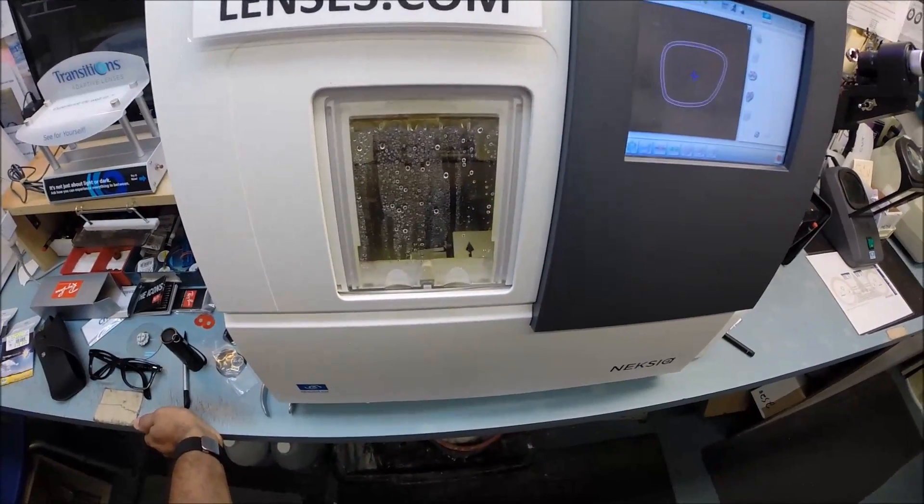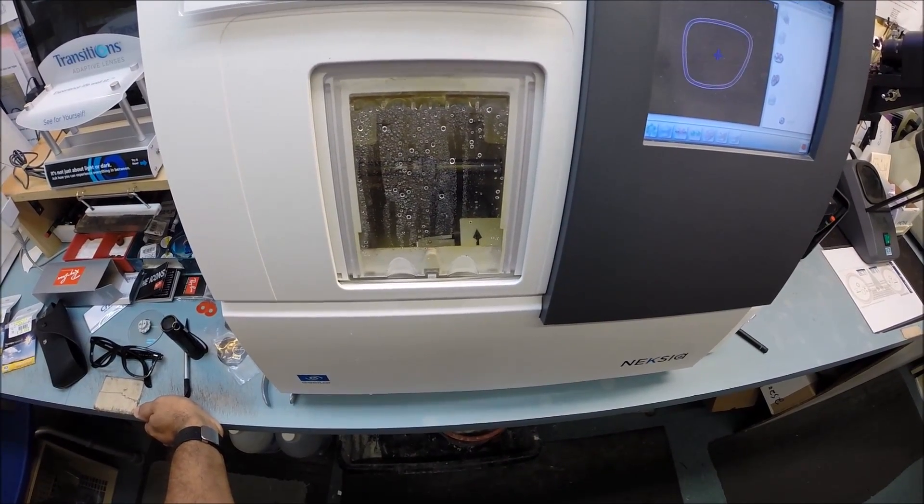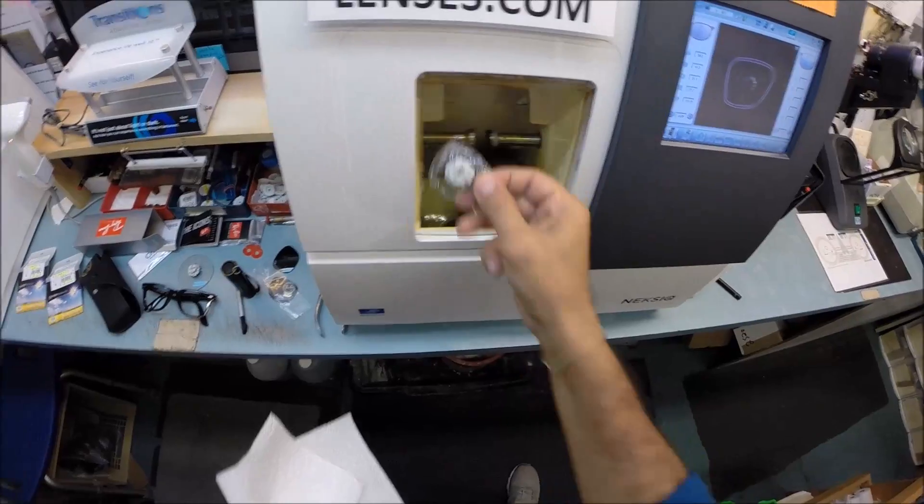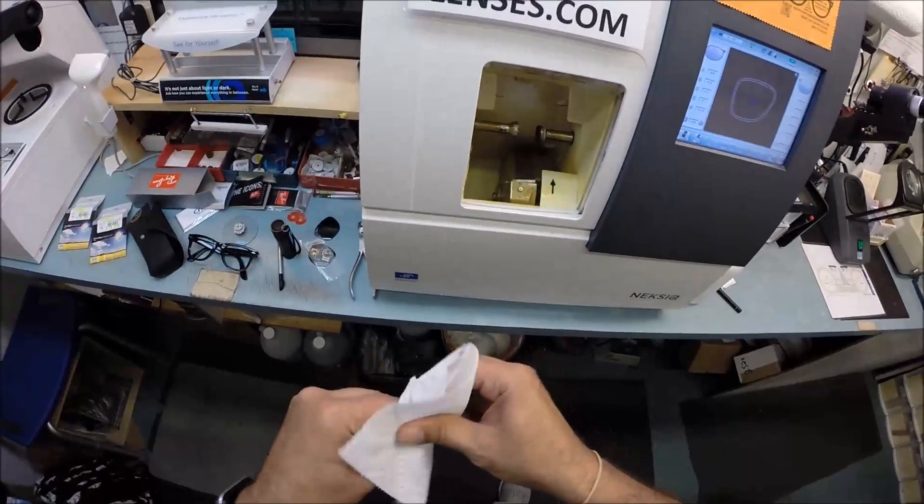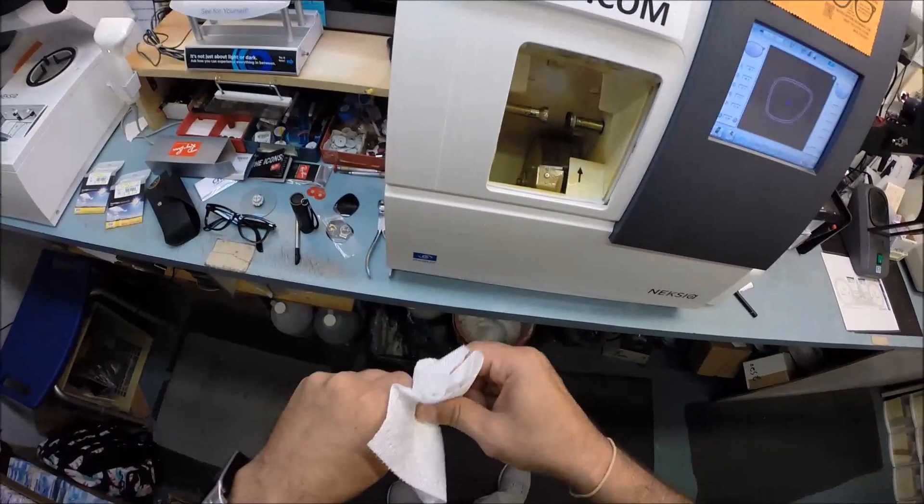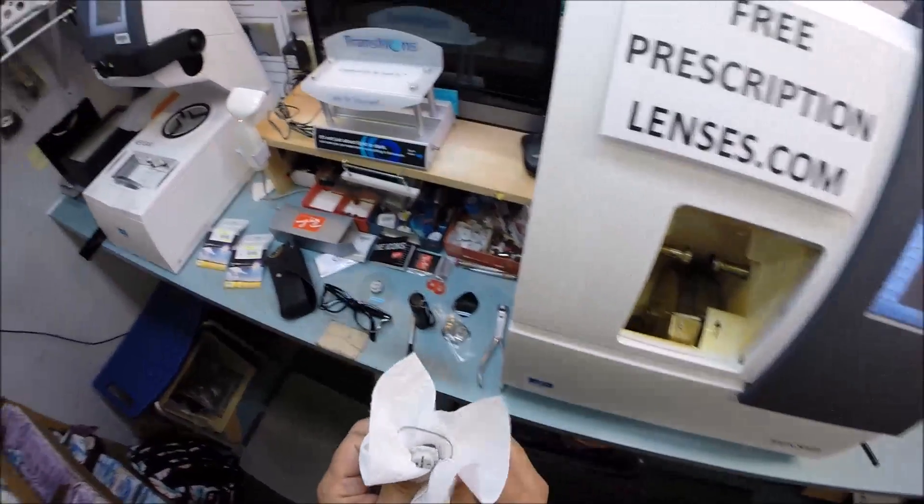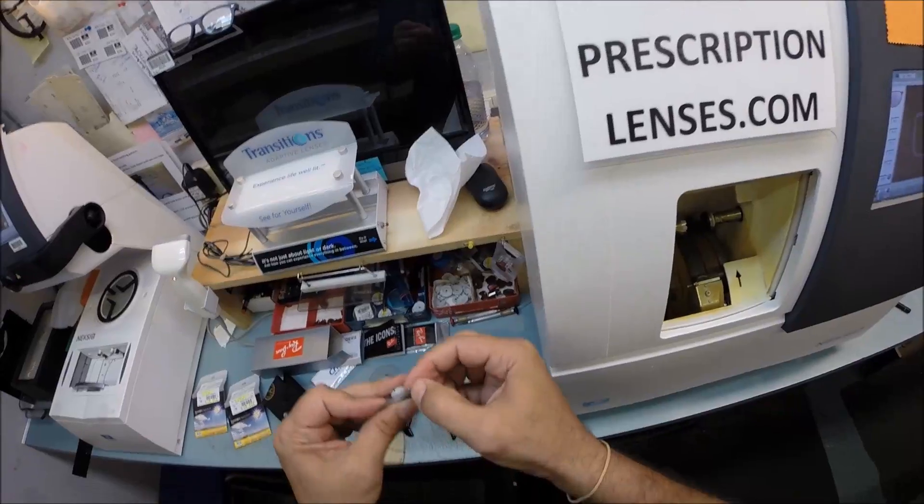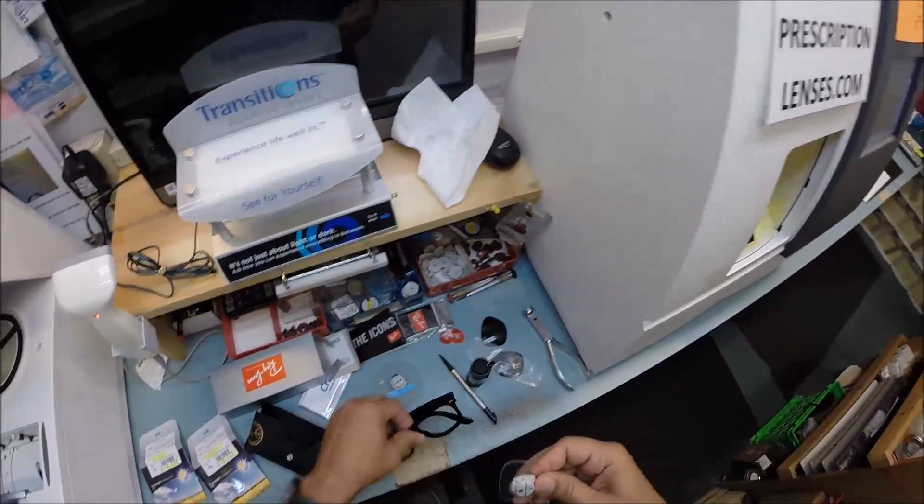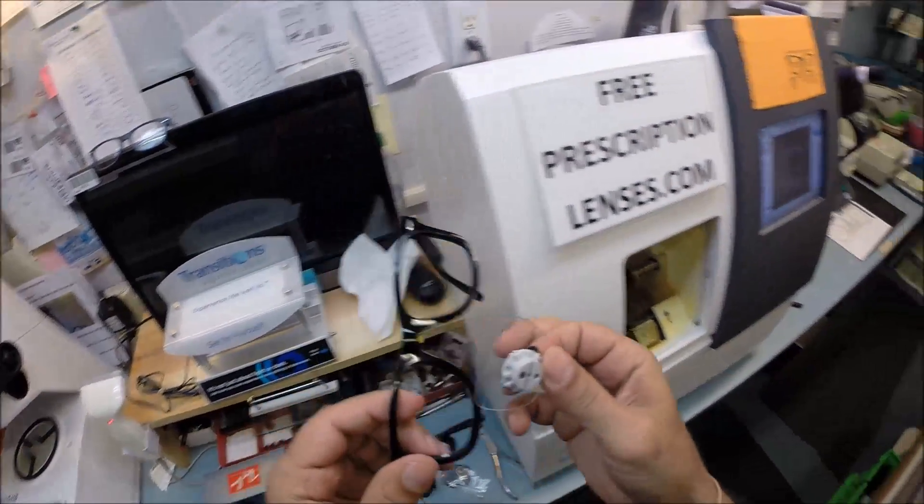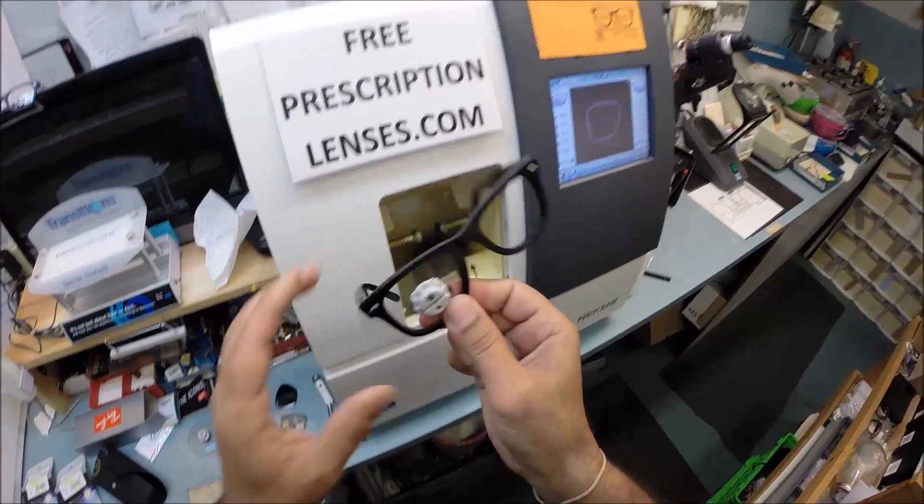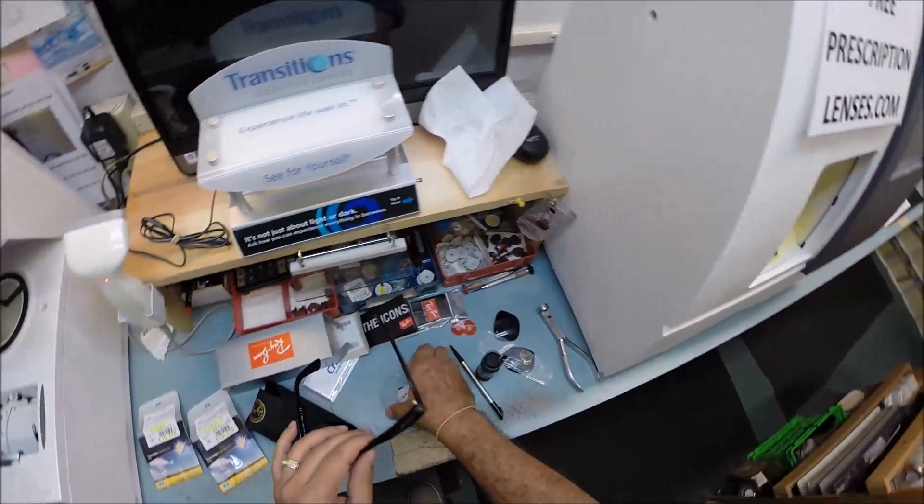I'm now gonna open the door with my mind. Grab a paper towel to dry the lens off. I can melt ice with my mind, it just takes a couple hours. I use my thumbnail to make sure any optical debris has been removed from the frame. I'm gonna tuck it in at the outside corner first. Using my thumbs I press down. It snaps right in.